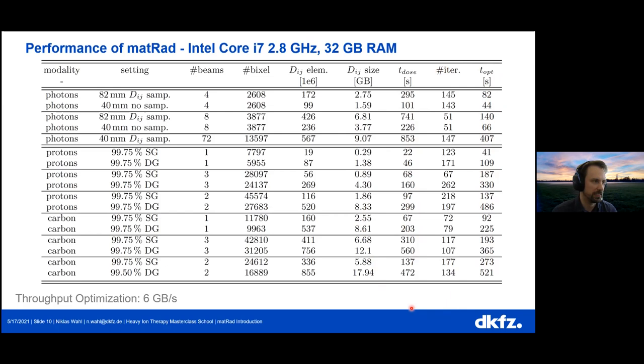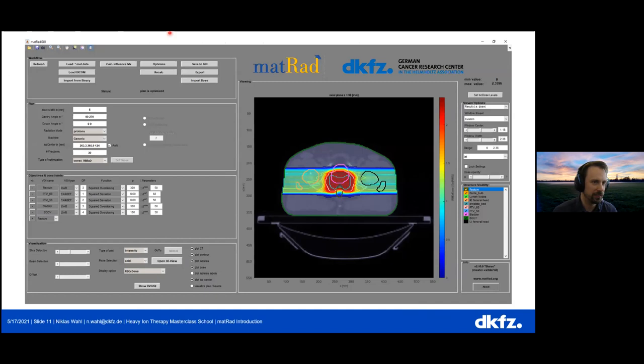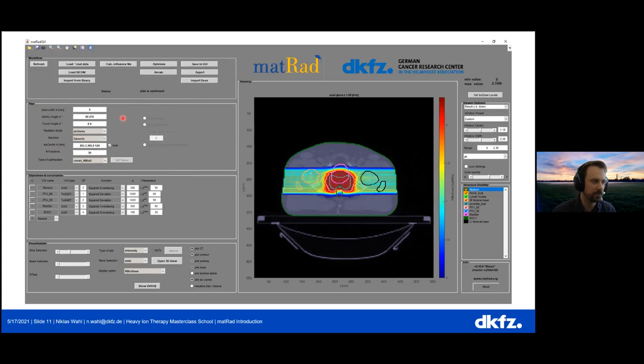Just to give you the first feeling of how MATRAD looks: this is the user interface. You see there are some settings that you can do. It's all quite raw — not as controlled as a commercial system. That is another reason why we like to have such an open source system: you do not need to implement every safeguard required in a clinical product. The settings can be quite raw and you can play around; you can, in a sense, hack it. But it allows you to do all the general treatment planning workflow, or most of it.